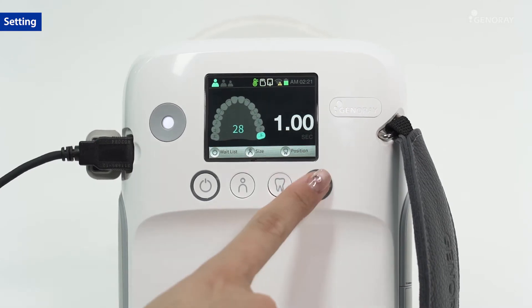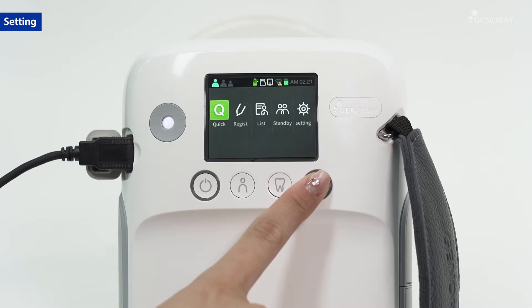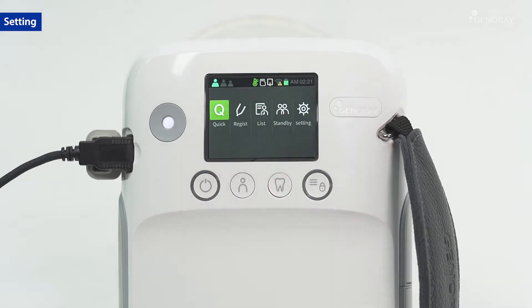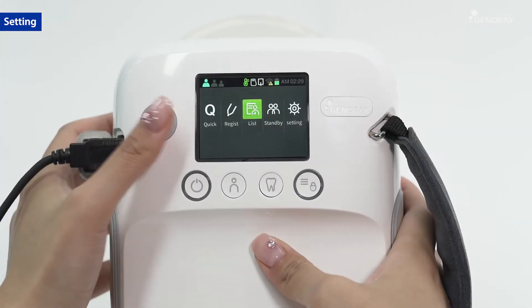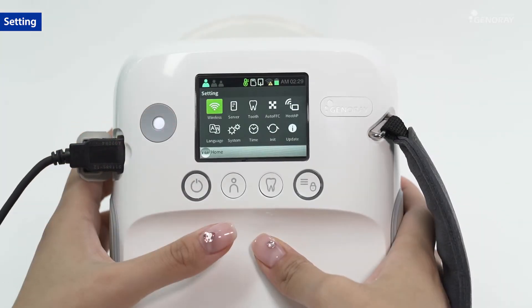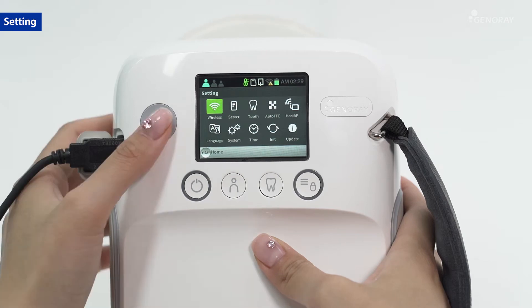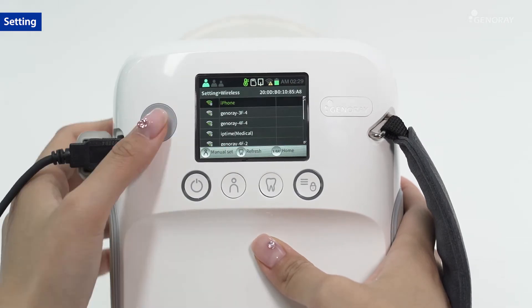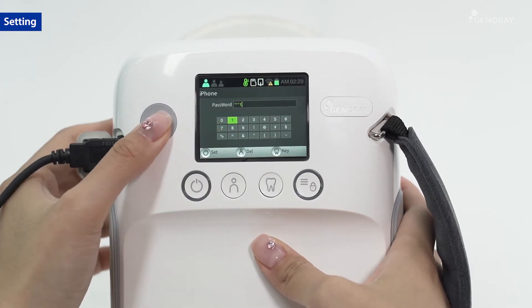Press the menu button. Manage the patient as shown, and set various options in the settings window. Set up a Wi-Fi connection with the server.